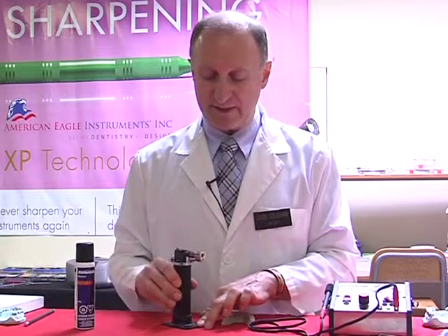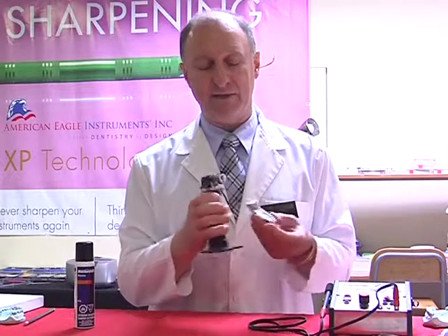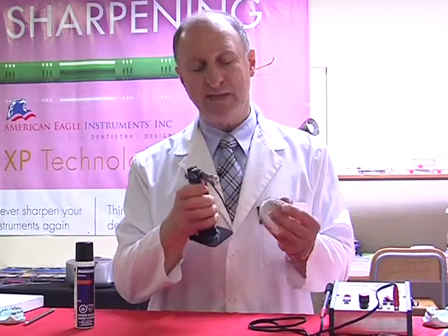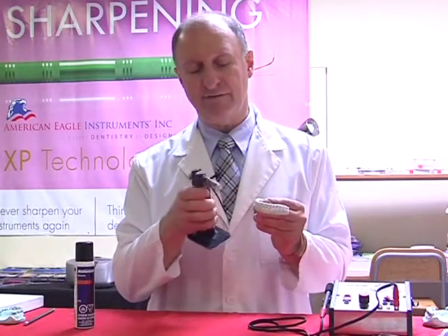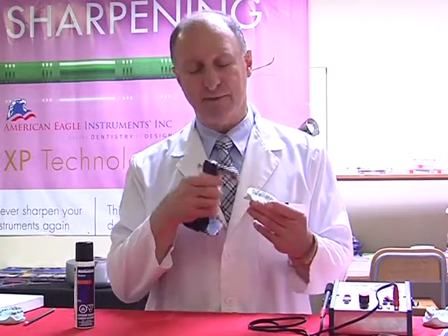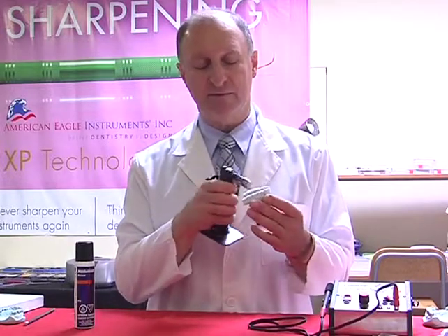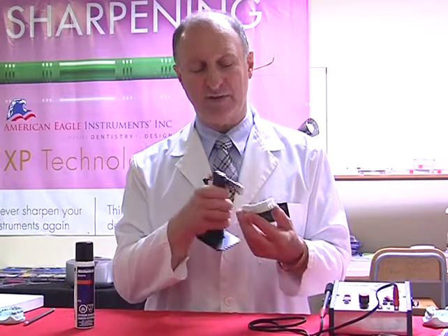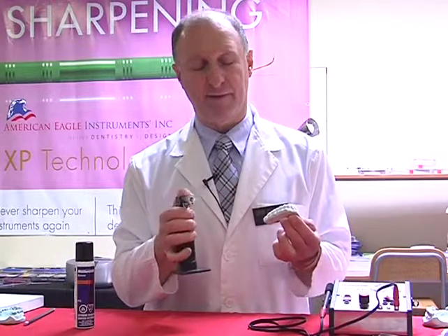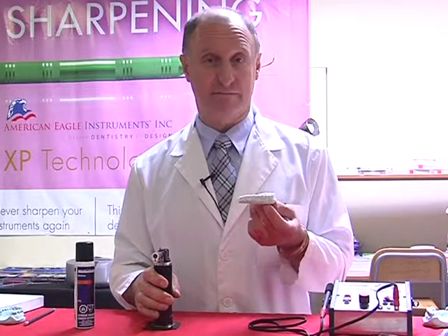And when we're ready to use the unit, I turn this on, push the button, and then I'm going to use a passing motion backwards and forwards, and this will slightly melt the surface of just the fine edges of the material, and it just gives a rolled edge. So when the tongue comes into contact with this, it feels nice and smooth, rather than feeling something that's sharp and obtuse to the tongue. I then let this cool, and we've now finished our bleaching tray in a matter of moments.